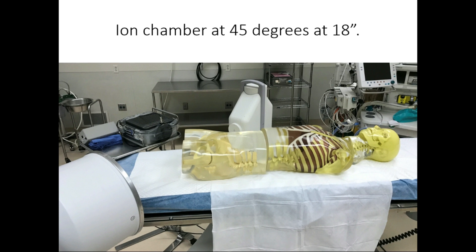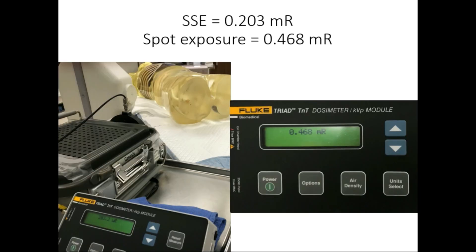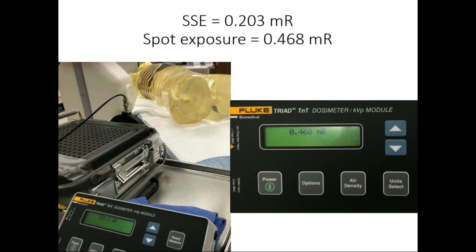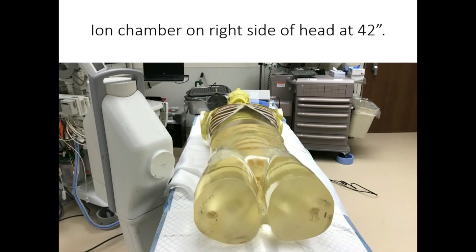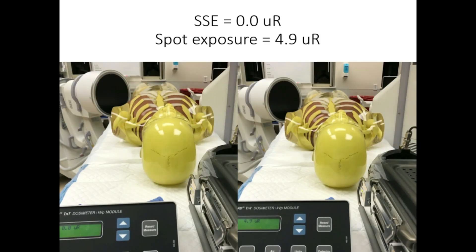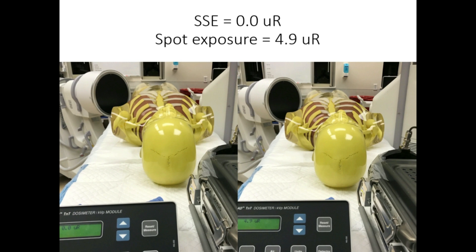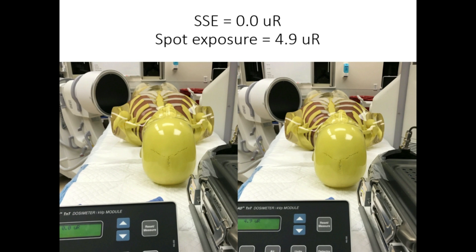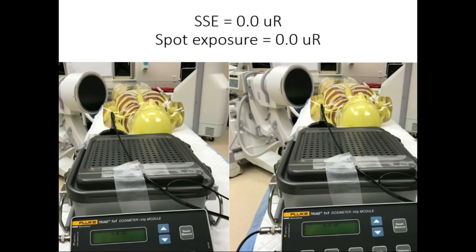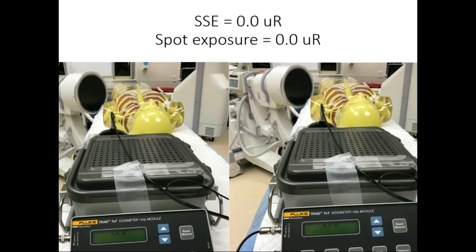At 45 degrees towards the feet, the SSE is 0.203 milli R and the spot exposure is 0.468 milli R. We then moved the ion chamber up towards the head to show the dose an anesthesiologist might get at 42 inches away from midline of the hips. On the right side of the head, the SSE is 0.0 micro R while the spot exposure was 4.9 micro R. When we moved to the left side of the head, both exposures were 0.0 micro R.